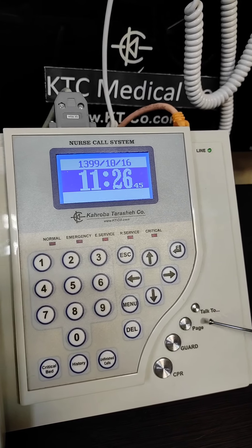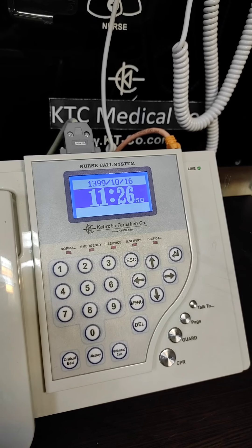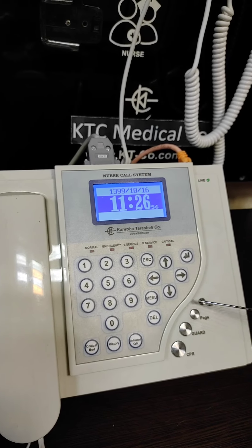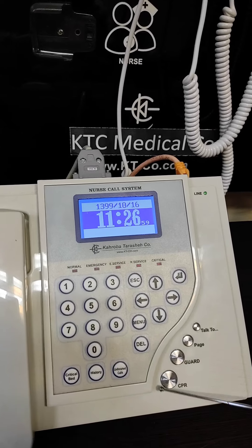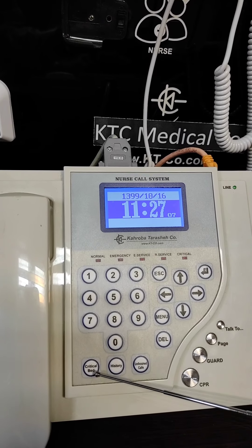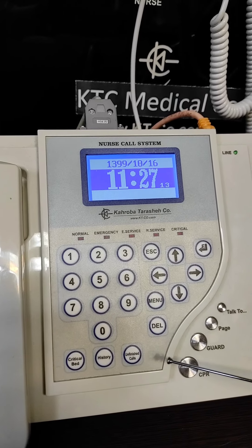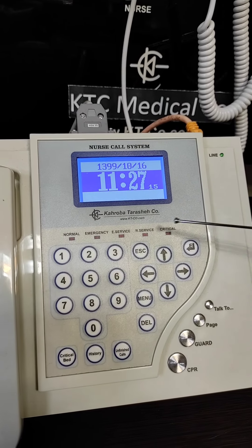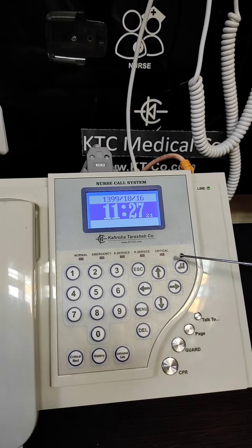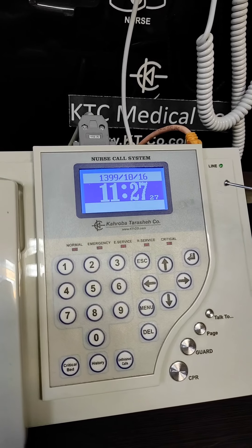There is one button for talking to a patient — you can choose a patient using the keypads and then talk to the patient directly using the intercom panel. We have one dedicated button to page an announcement in the ward, dedicated buttons to initiate an emergency code call, and dedicated buttons for critical bed assignment or to monitor the history of unfinished calls. We also have dedicated notification LED lamps to notify the staff of any existing call, be it normal, emergency, or other critical.